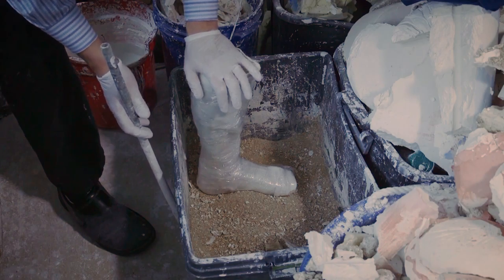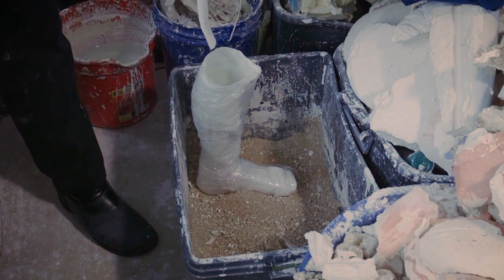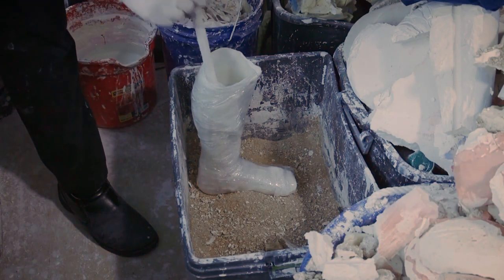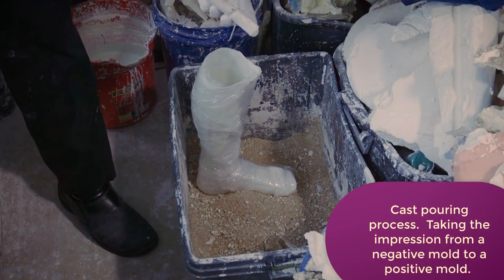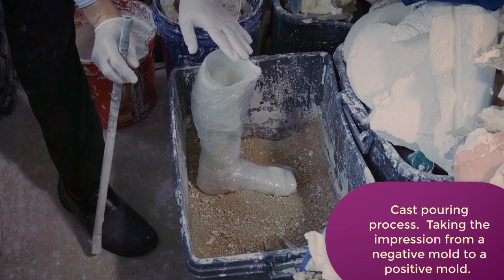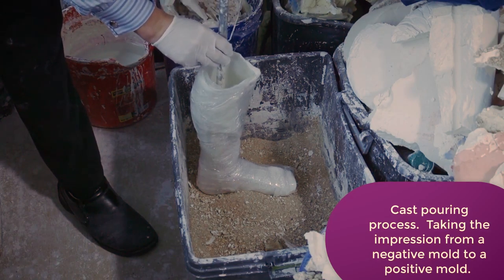Our cast is ready. We're now going to start the process of going from the negative to the positive — this is currently how things are done. This is our conduit pipe; it goes in here. We reuse these pipes — they're great. The bottom has to be bent because we don't ever want it to spin loose. The slight bend at the bottom is crucial. You never want the conduit poking out of the heel, so I'll pull it up just slightly.